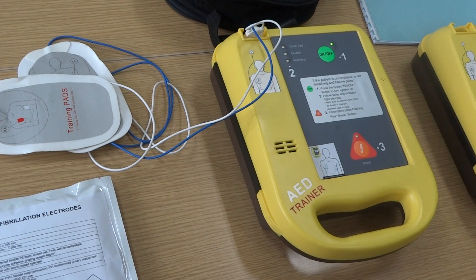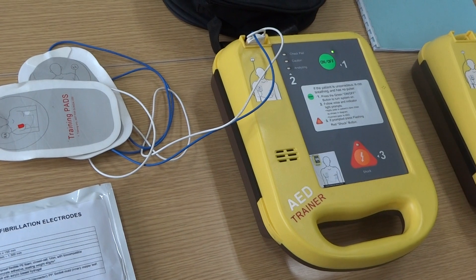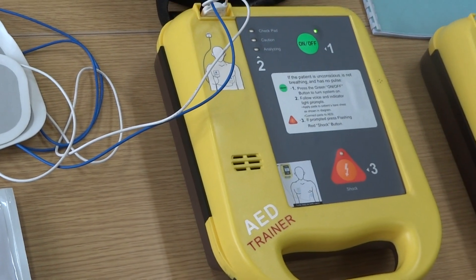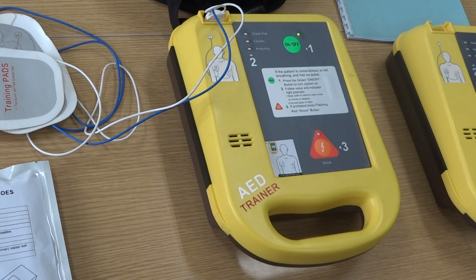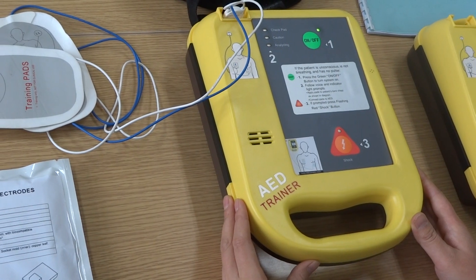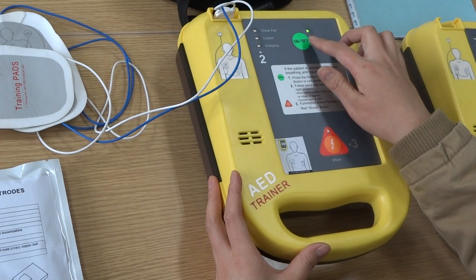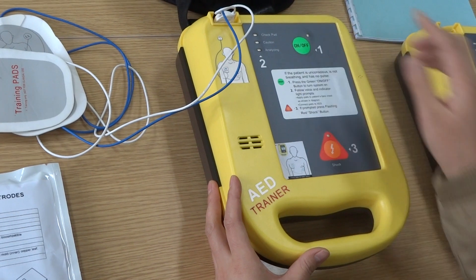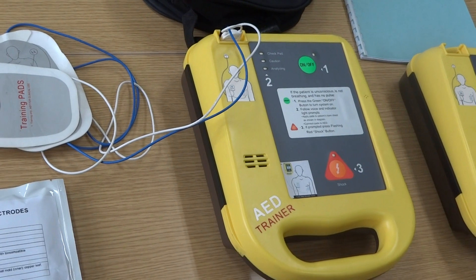This means the patient needs CPR. The emergency staff should follow this rhythm to perform CPR on the patient until the staff determines the patient is okay, and then the whole process will be over. To turn off, press the green button for two to three seconds. This is the complete operating process. Thanks for using our device — have a nice day.